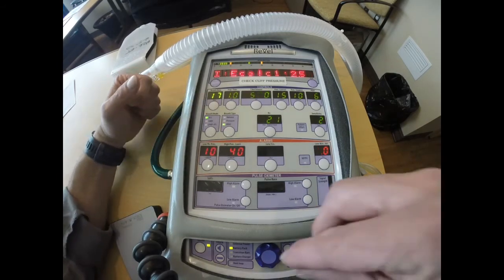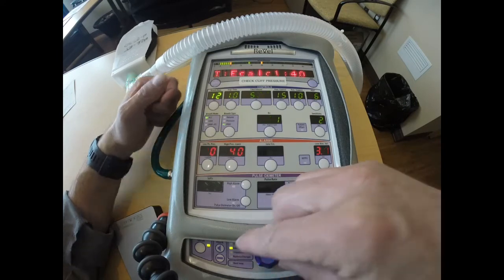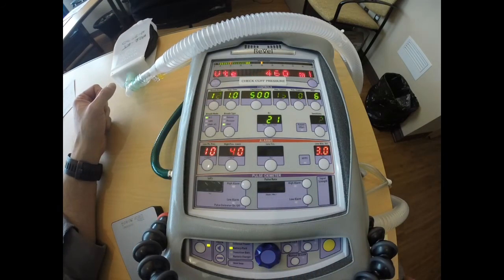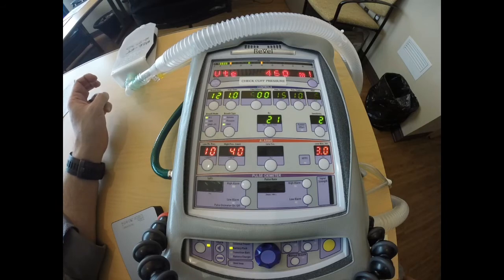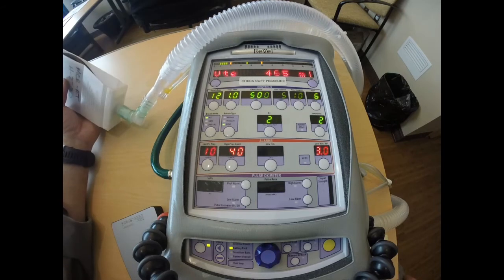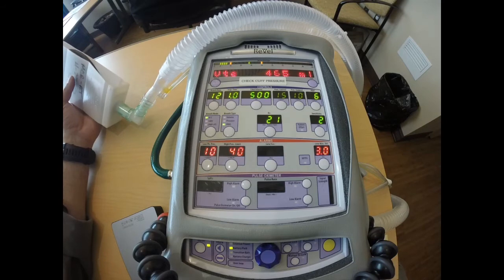And adjust this respiratory rate to, I'm not sure what happened here. So, okay, what is a common alarm that we see with pressure regulated volume control? I think the most common and concerning alarm is a medium priority alarm that the ventilator will give us, and it is volume limited. So I'm going to attempt to trigger a volume limited alarm and explain it.